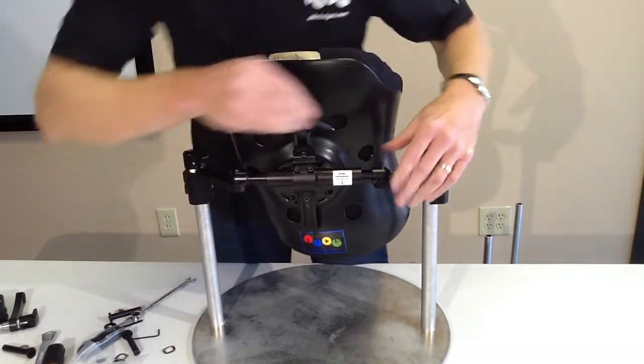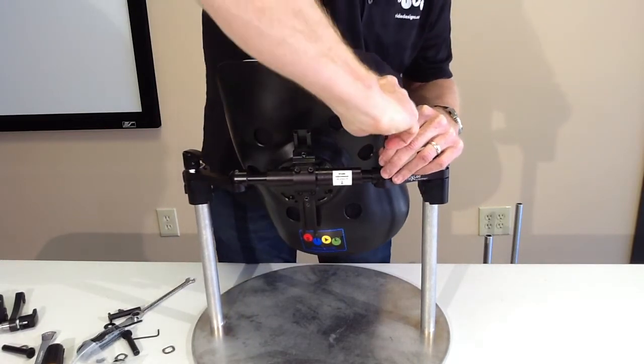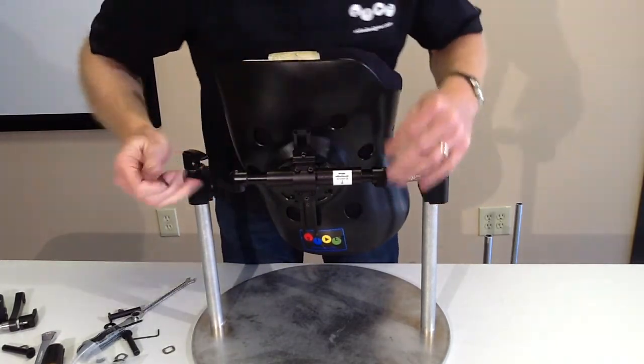So I'll look at it from the side. Oop, there we go. That one didn't want to engage at first. Moved it just a teeny little bit. And now I've got those teeth engaging.